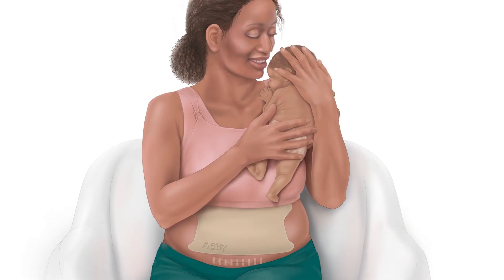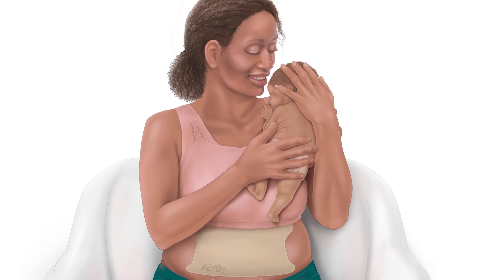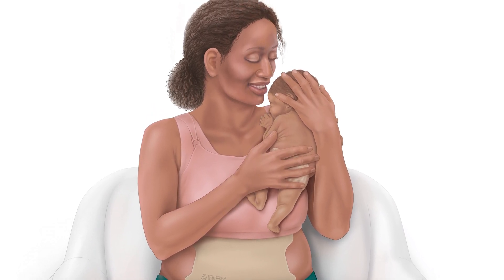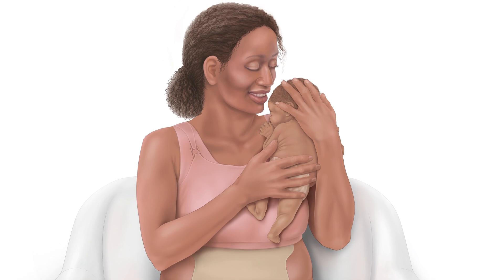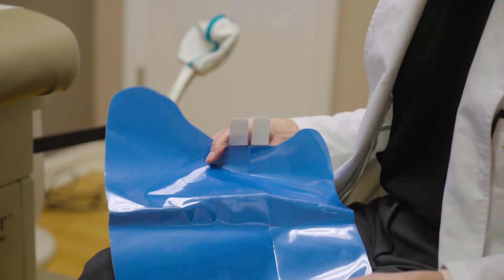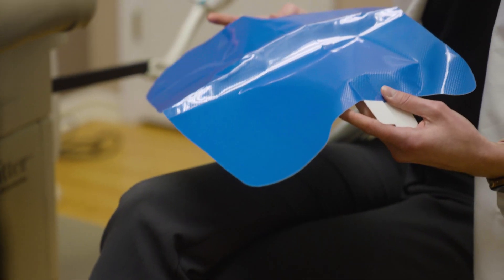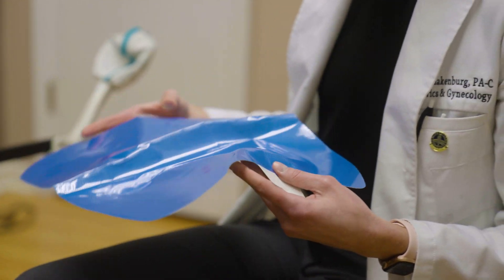The Abbey is very durable. The patient is able to wear it for about two weeks after she's discharged from the hospital. You only need one medical professional to apply the initial application of the device. Once the product is successfully placed, you kind of set it and forget it. You're able to go about your normal life — shower, change — and it does not interfere with a mother carrying a child, breastfeeding, or skin-to-skin contact, which is super important.